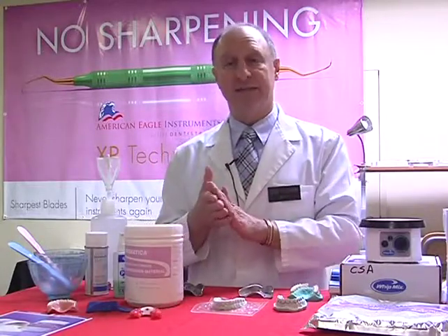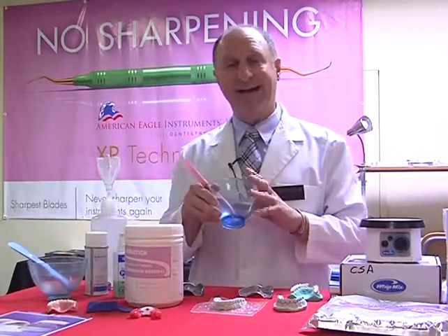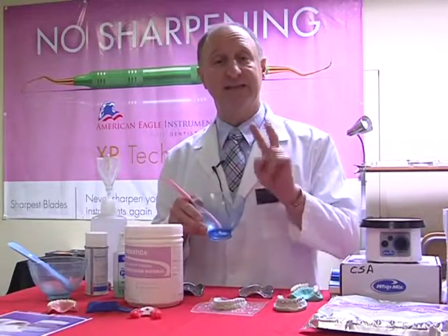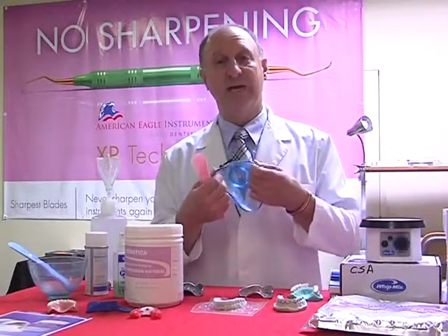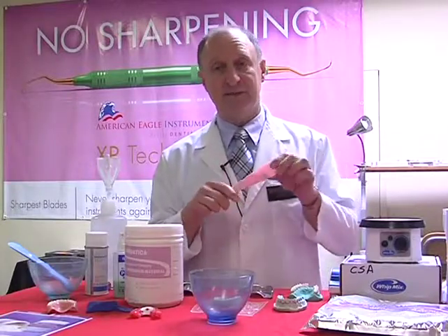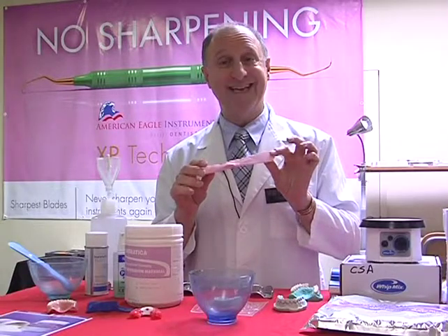So, handling ability. Always make sure that when we're working, we keep our alginate bowl separate from our stone bowl. That means we need 2 different styles of bowls. In this case, I'm working with a very thin, flexible type of bowl material. The same goes for our spatulas, which are very flexible and made of a nylon-based material that can be heat sterilized.